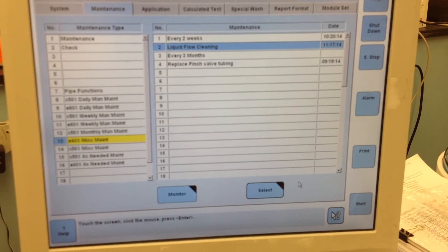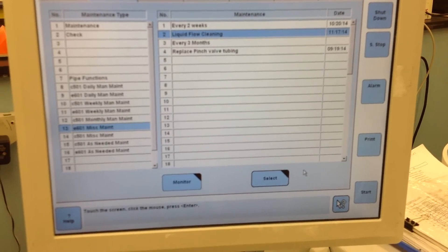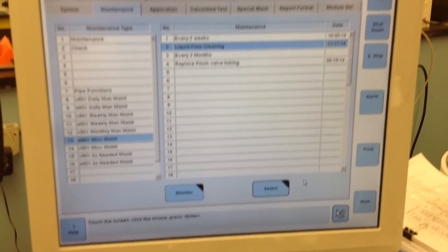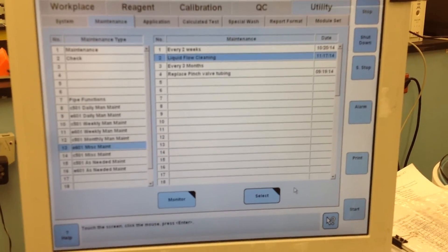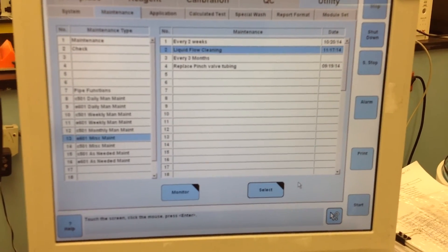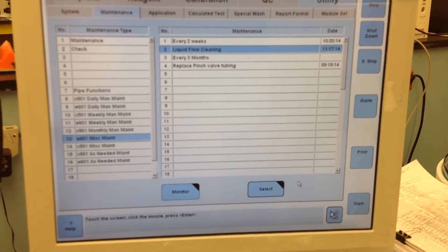As I mentioned, this takes about 34 minutes. After this is completed, you would simply just go back over to the 601 side.